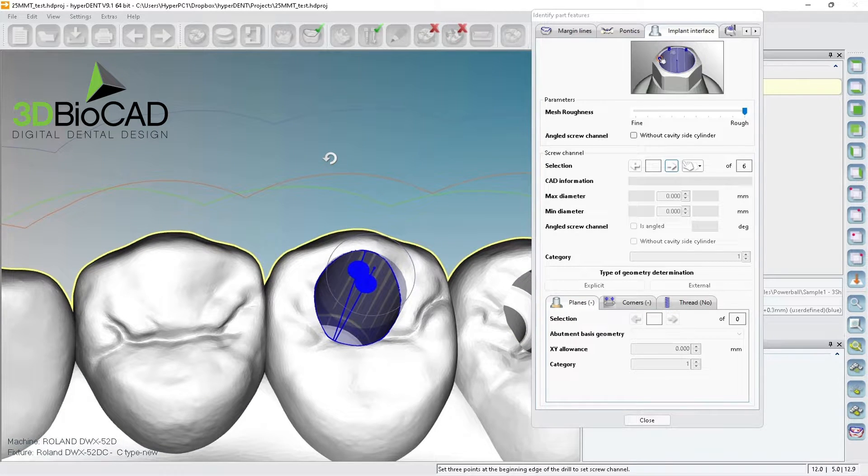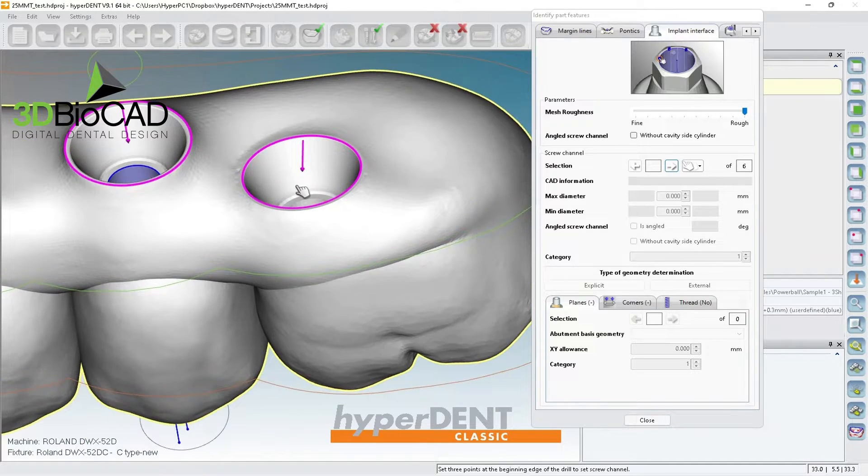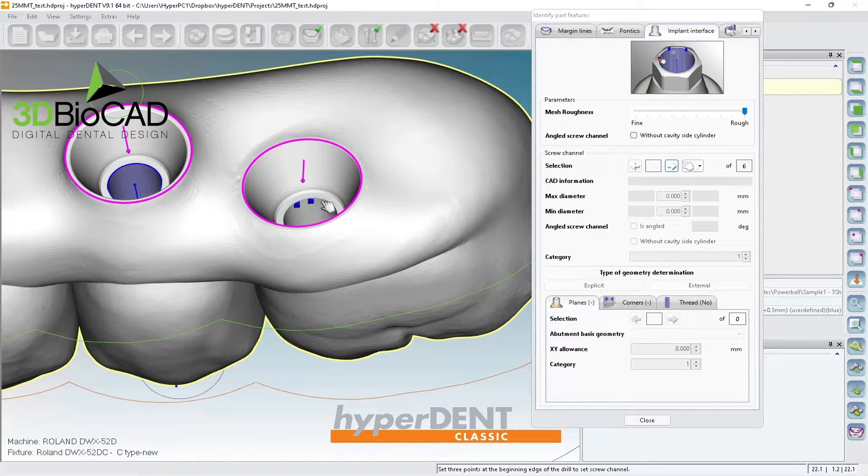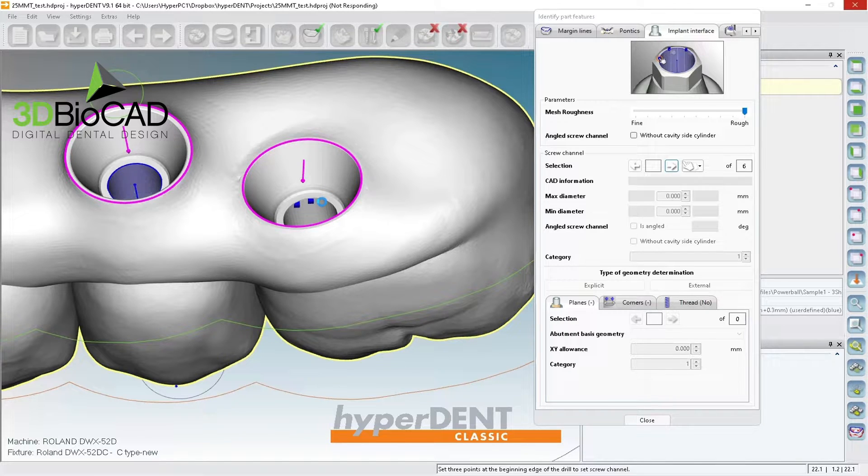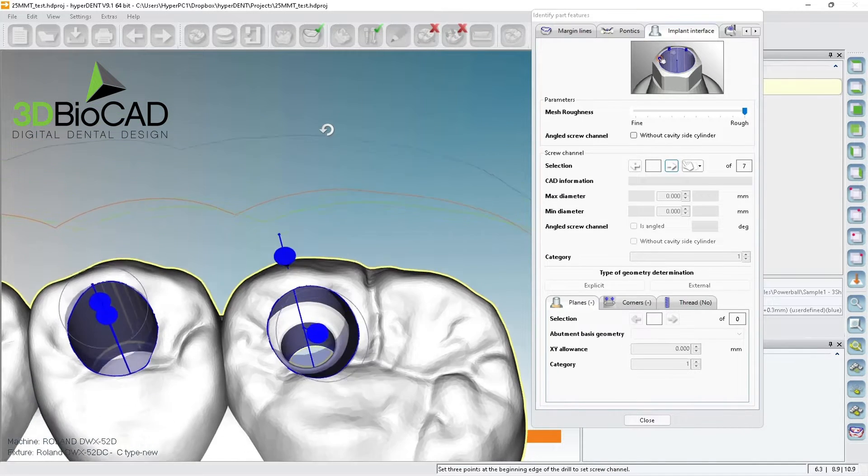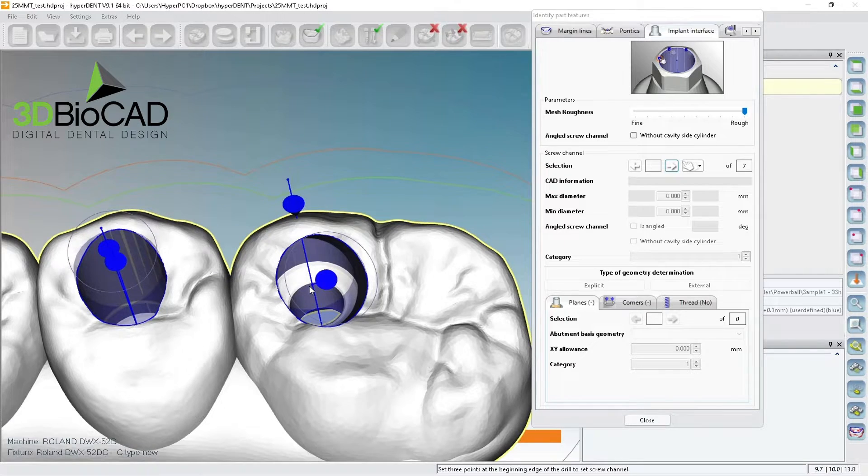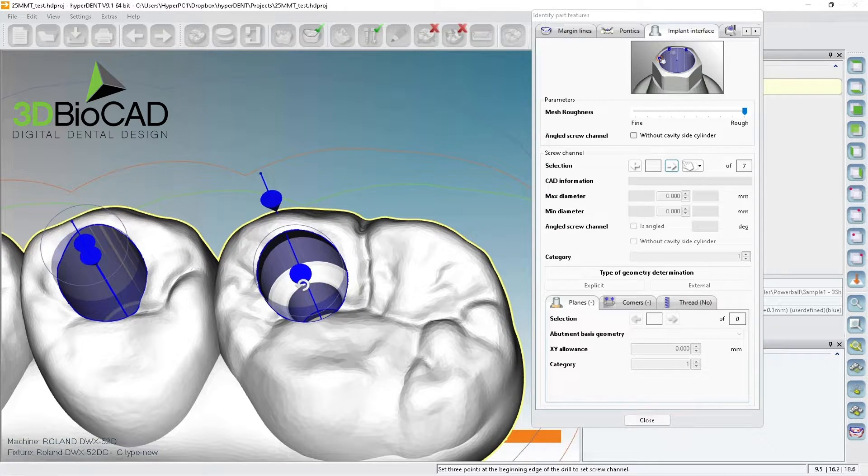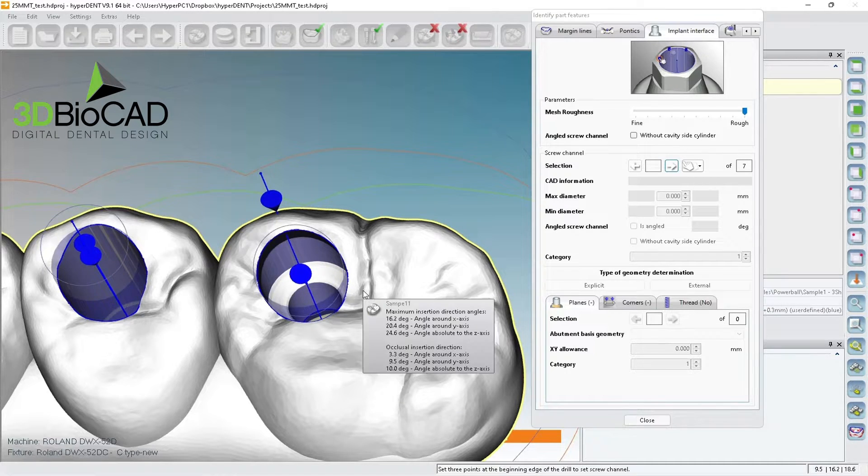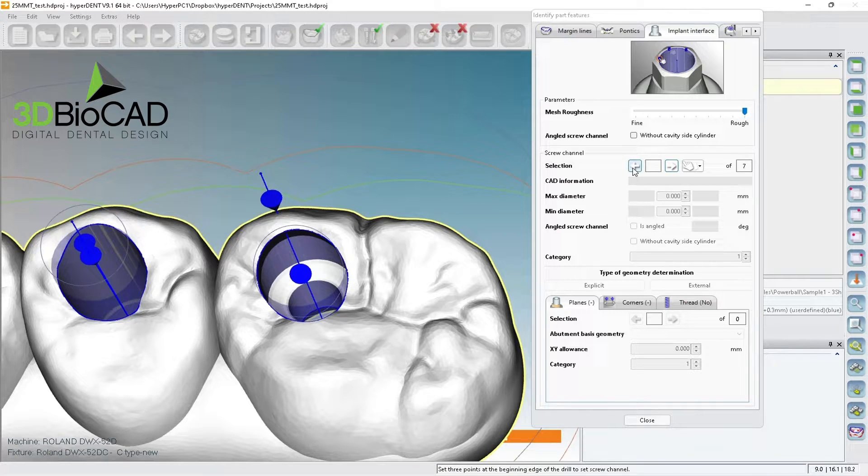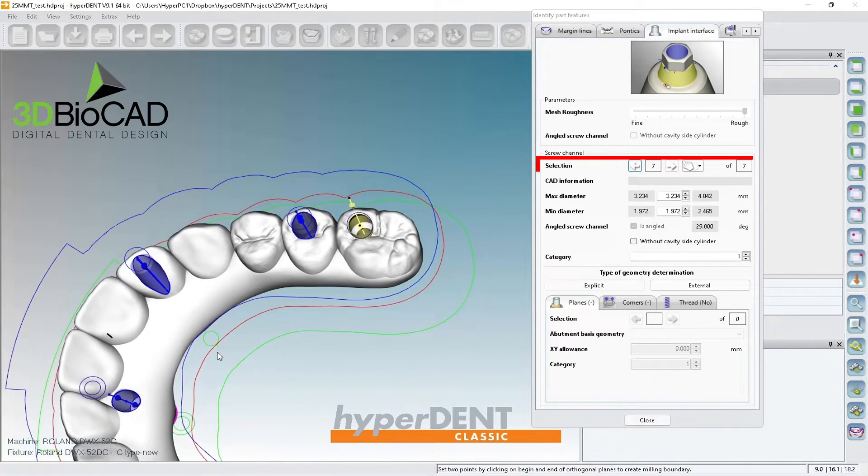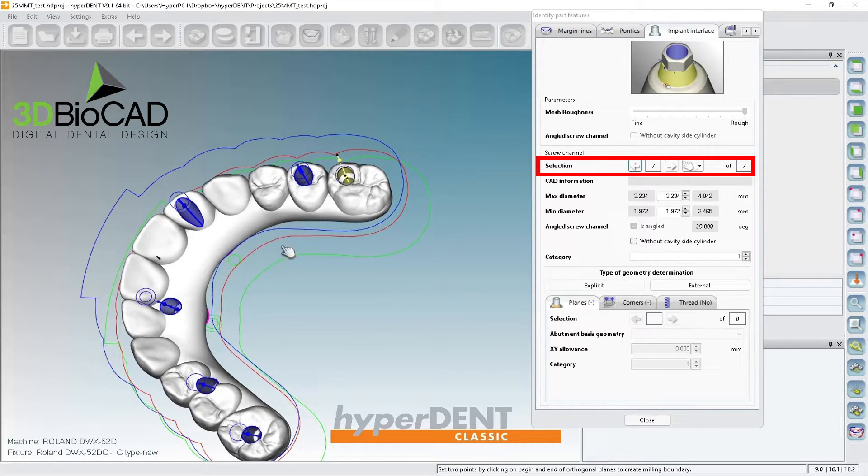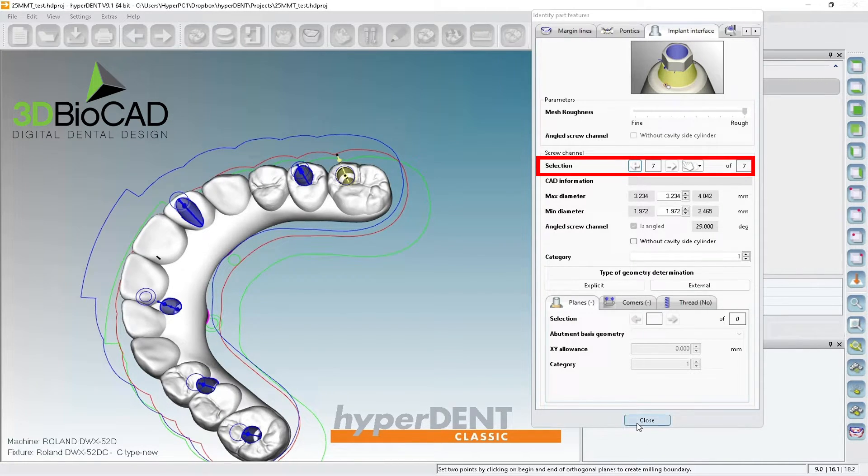This is perfect, this is it. So now it has a two arrow, so it is angle two. Also, if you're having some special type of seating, then please let our support know too, because sometimes we might not able to identify what kind of seating area it is. But now you can see this one has two as well. So I mentioned about having six channels for six implants, but we have six implants but seven selection. So that means something is not right.